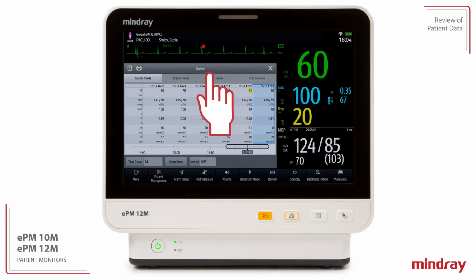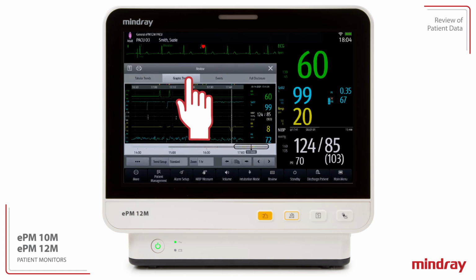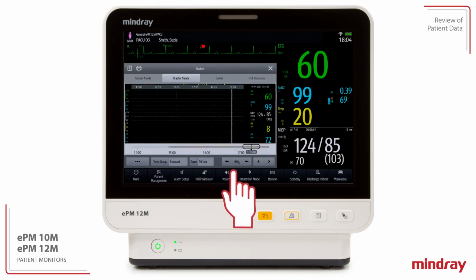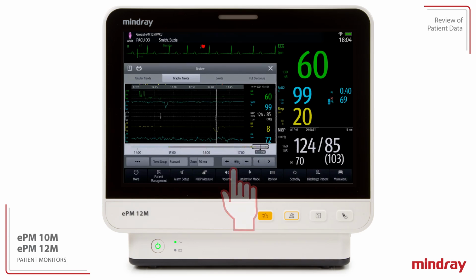Select Graphic Trends to display trend data in a graphic format. The clinician can configure the zoom time from the drop-down list as well as the group of parameters to be displayed. Select the Record icon in the upper left corner of the review dialog to print graphic trends to the integrated recorder. If configured, select the Print icon in the upper left corner of the review dialog to print graphic trends to a designated laser printer.